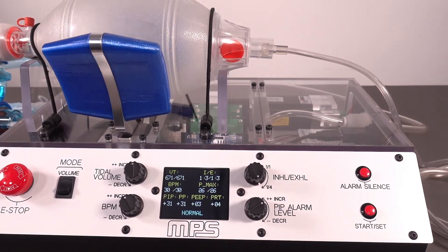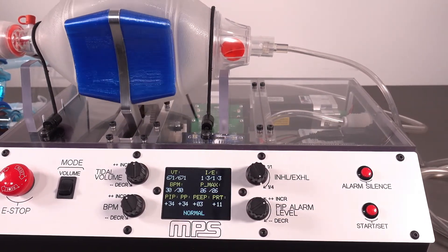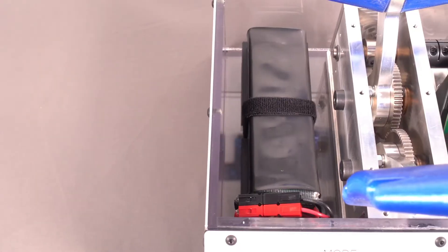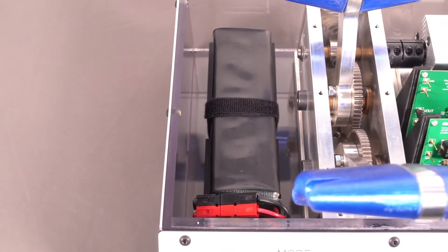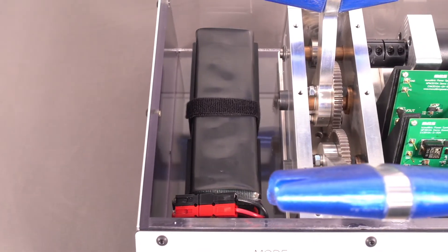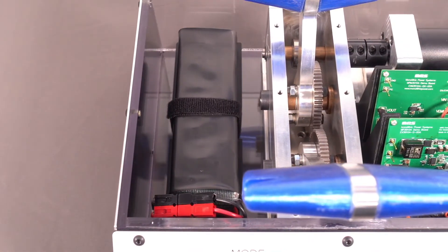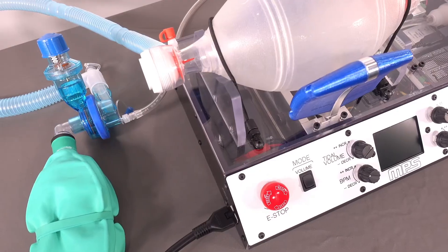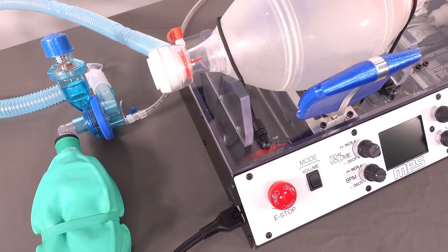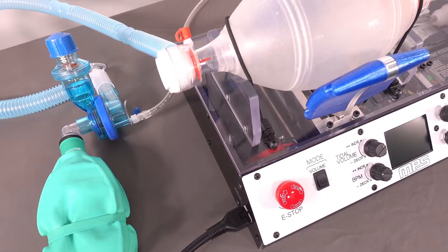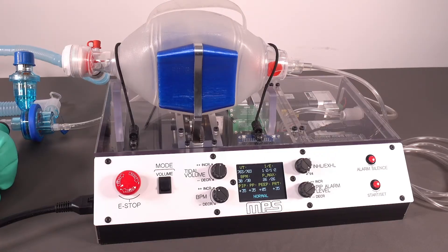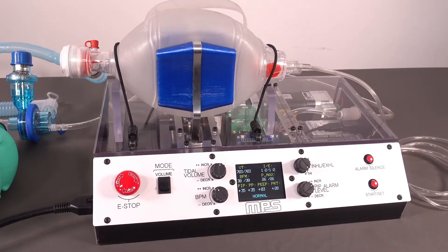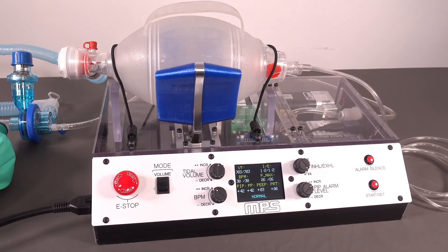One of the key features of this MPS design is the integrated backup battery with MPS battery charging and power path management capabilities. Primary power is supplied with a commercial AC to DC adapter. While plugged in, this powers the system and maintains a full charge on the backup battery.